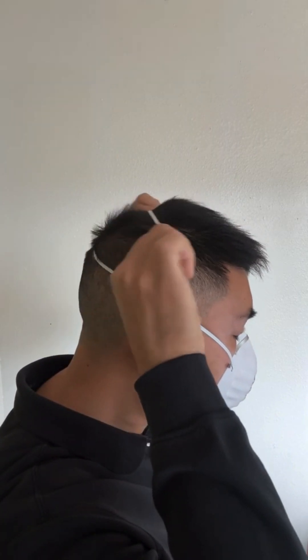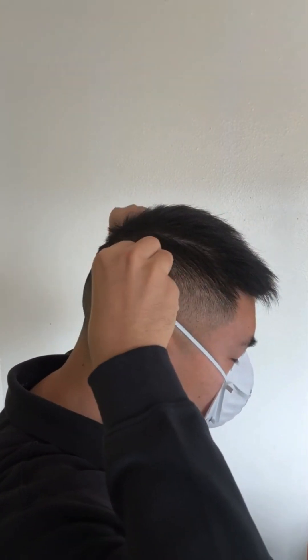Use your fingers to pull the bottom strap off first, then the top strap. Be sure not to touch the respirator in the case that the respirator itself is contaminated. It is now ready to be disposed.